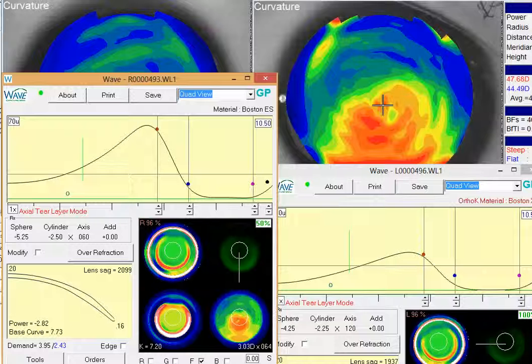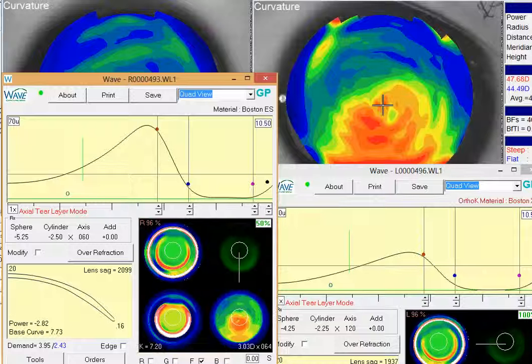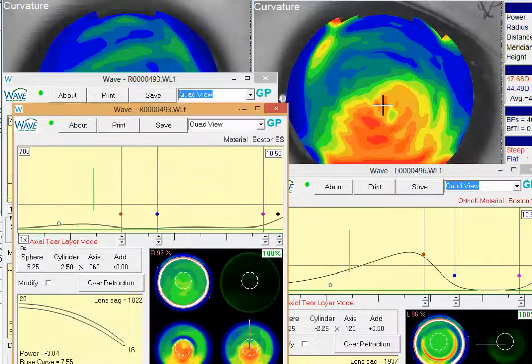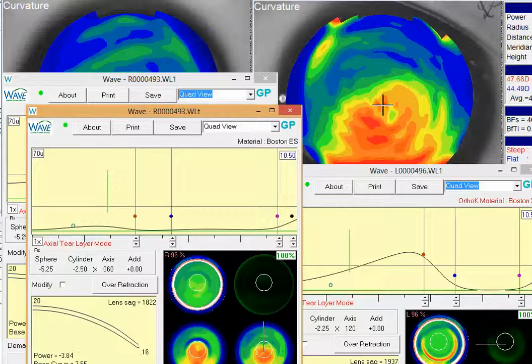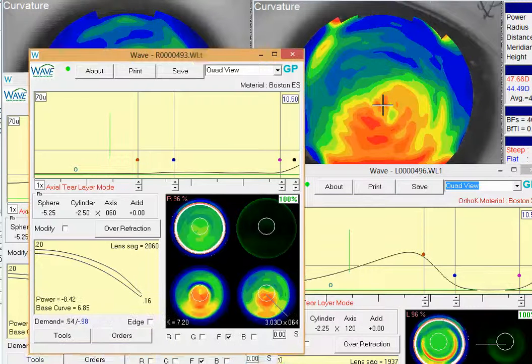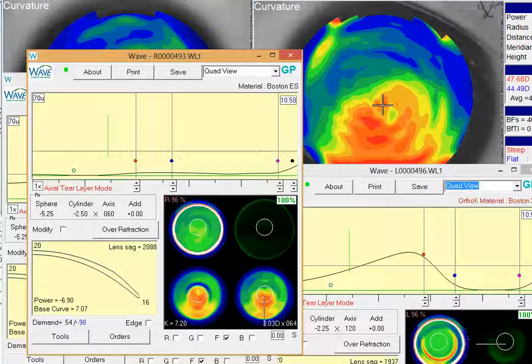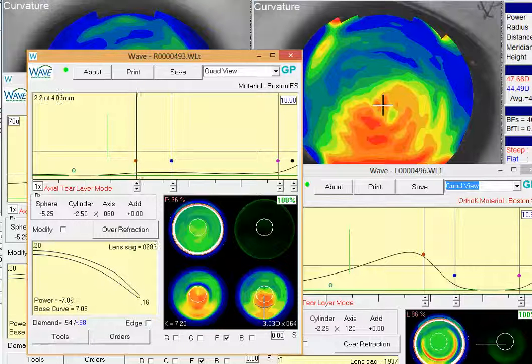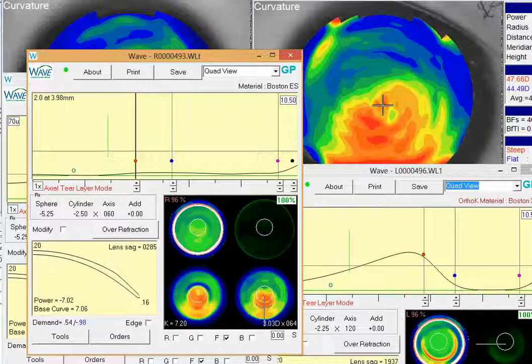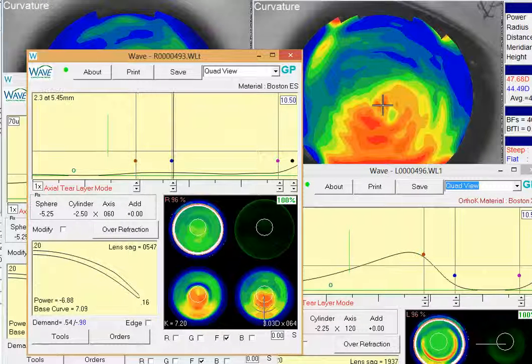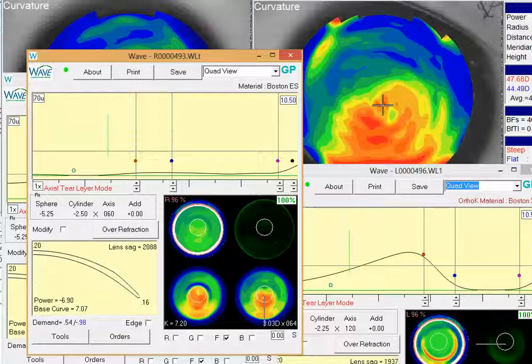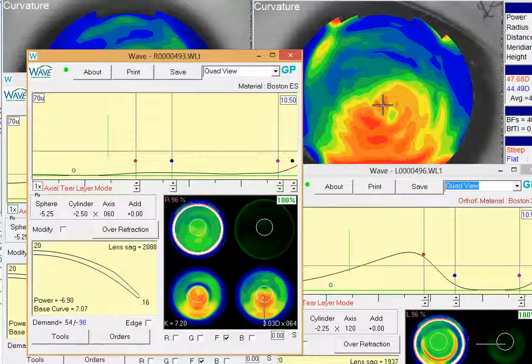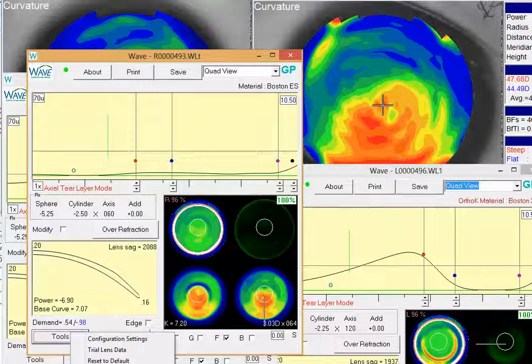Another thought, and you may want to even try this, is really trying to work on getting this back surface of the lens to really match that topography, and the best way to do that is to really go back to more of a custom design in this lens where you take your, I mocked up a little one for us here, and this particular one I set the red dot at about right around four or so, and just set the other one about a little over five, kept the larger diameter, went down and just hit current settings.